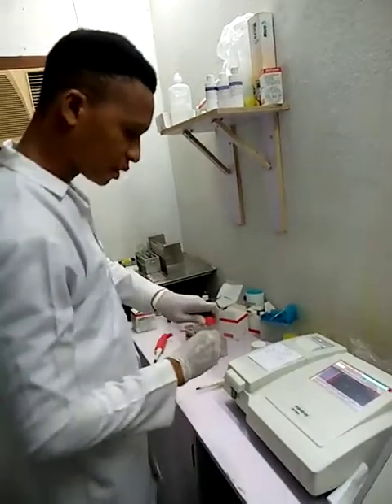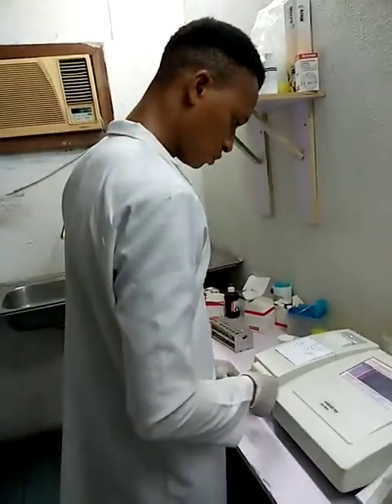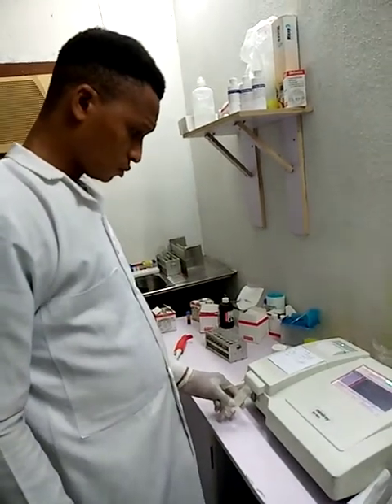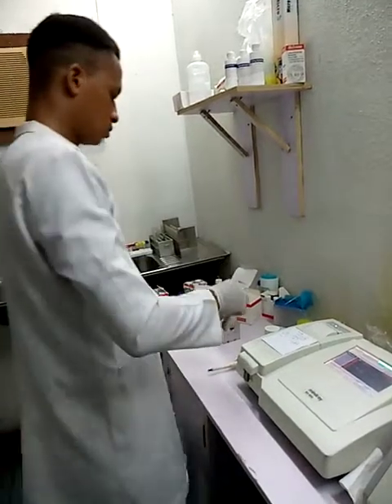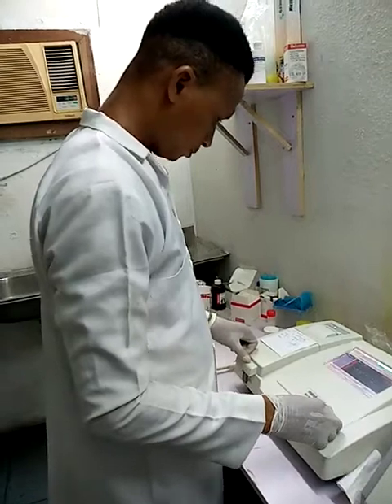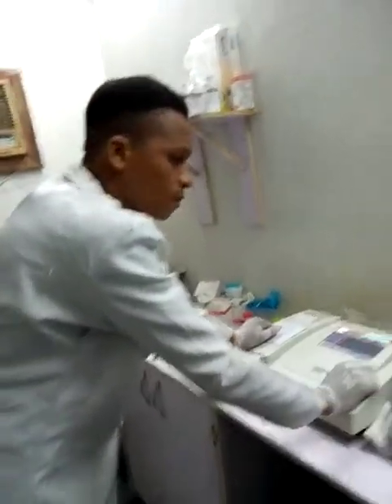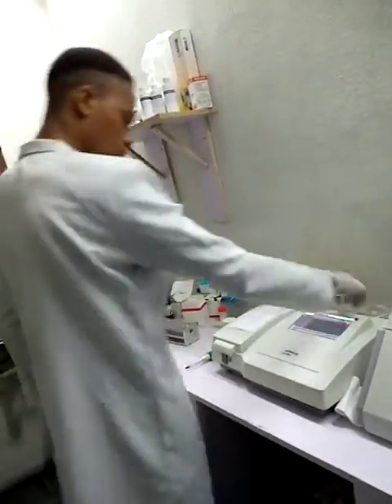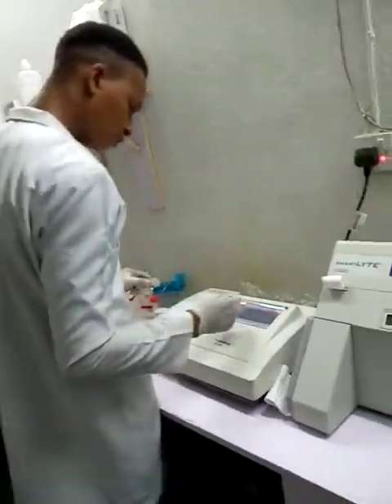I'll run my water blank. So my water blank says 0. I run my sample.